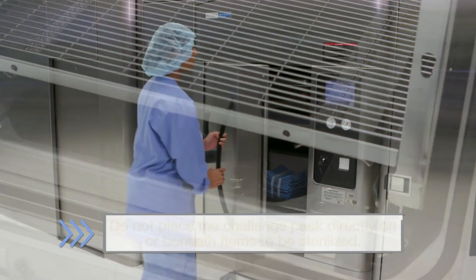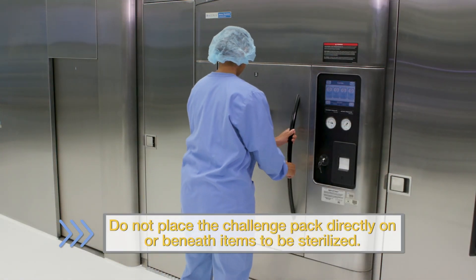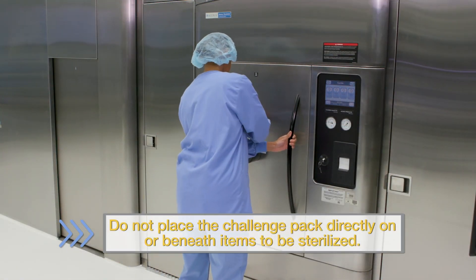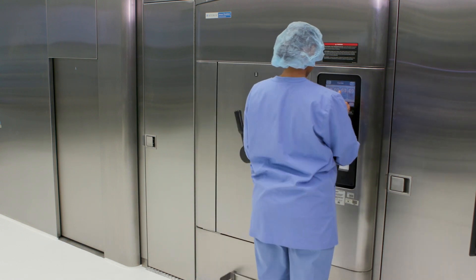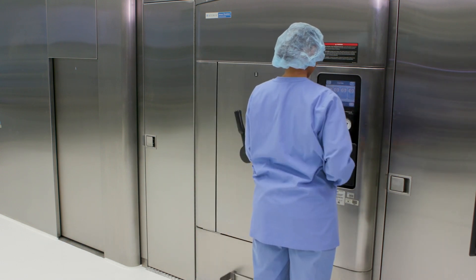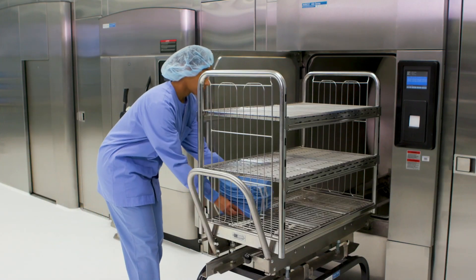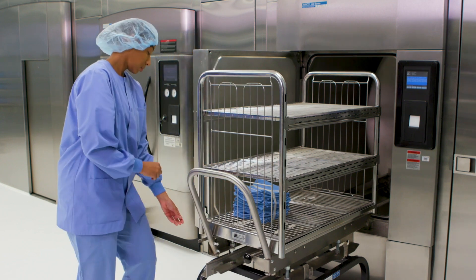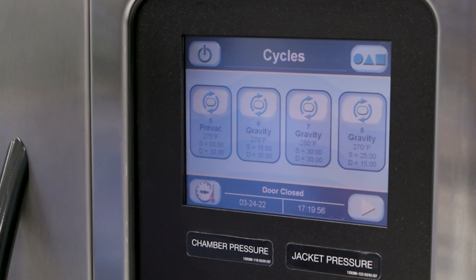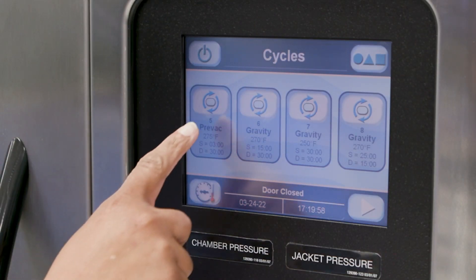For routine monitoring and load monitoring, testing is done within a loaded chamber. Load the sterilizer following the instructions for use. For sterilizer qualification, testing is done in an empty chamber. Initiate the appropriate sterilization cycle.